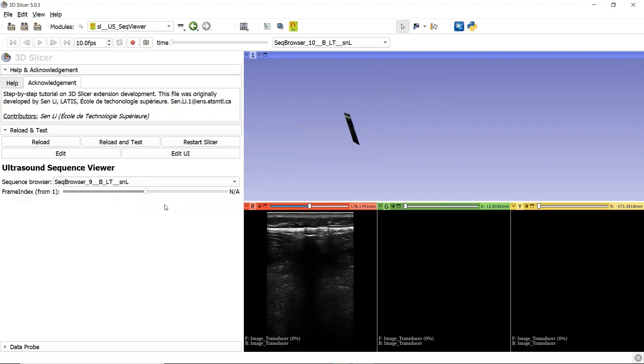There can actually be empty Sequence Browser nodes, which are created but not recorded yet. So, this is the module we are going to study together today.